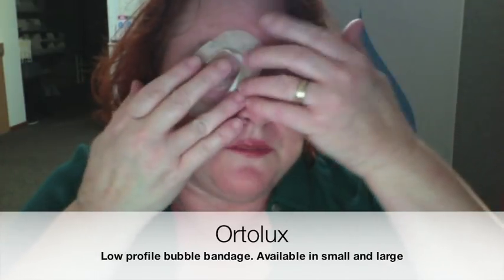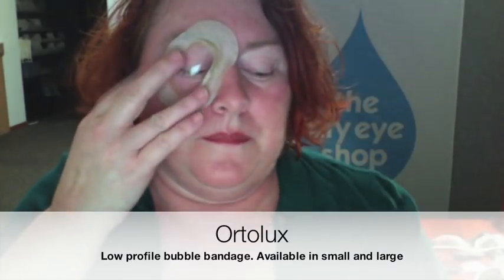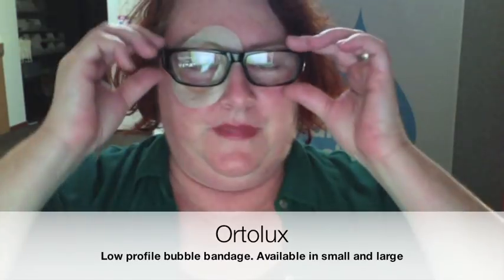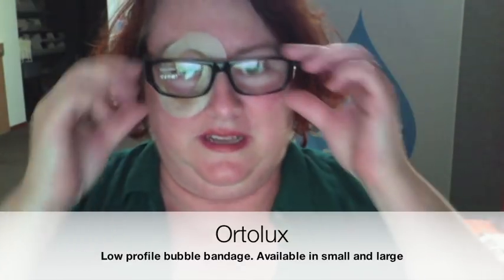I tend to just point it upwards on these. Sometimes people are able to use this one under glasses — I'm actually going to try it under these and see. Oh wow, it's pushing them out a little bit but not too much. I can't guarantee that it would work under glasses for everyone — it really just depends on the size of your orbital bone and where it sits — but for some it's clearly going to work.